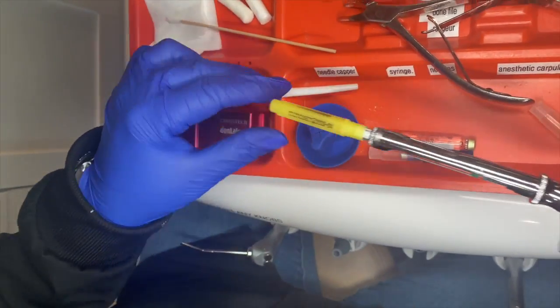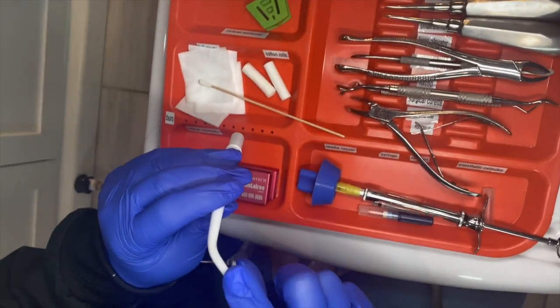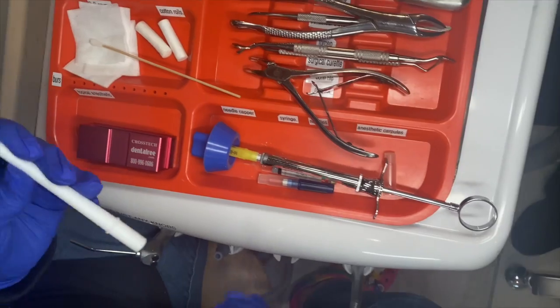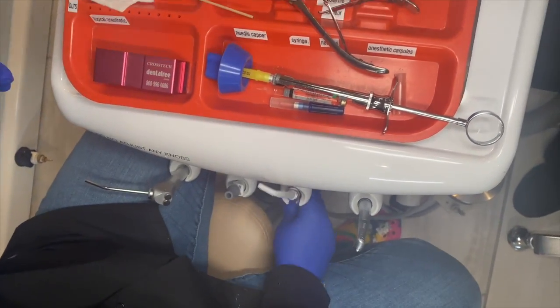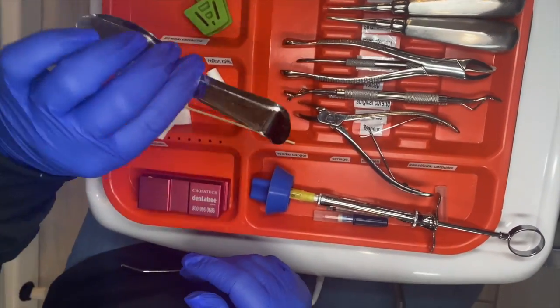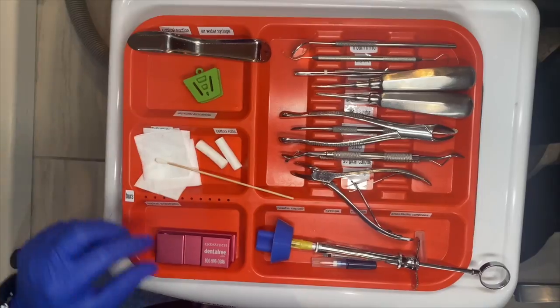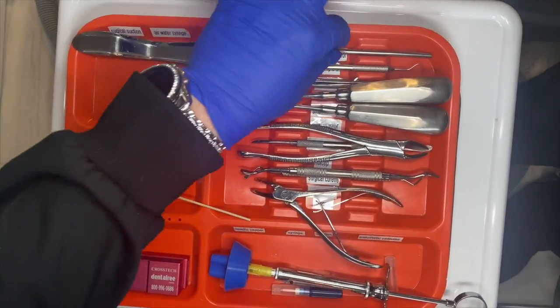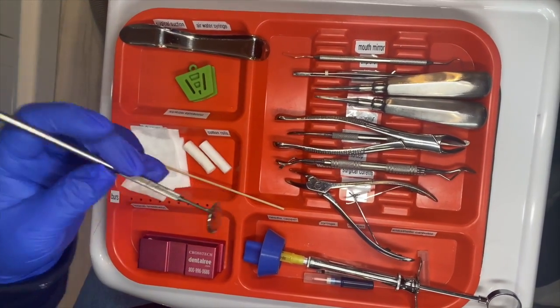We have that ready for our doctor. We have our surgical suction — it's got a smaller tip on it to get into the surgical site — it goes on to the same connection that the HVE does. We have a retractor; this is a Minnesota retractor that retracts the tongue, cheeks, anything that gets in the way. Bite block if the patient can't stay open. We have two-by-twos and cotton rolls.